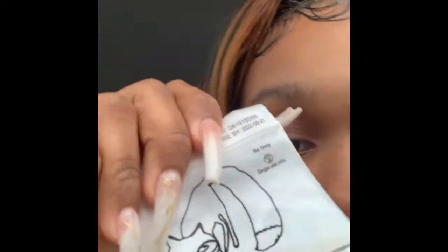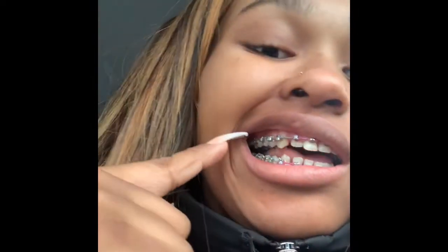I left the orthodontist. I got a power chain — a little small one just here to here, and then one here to here. They still want me to use these rubber bands at night, continuing from here to here, so they want me to keep doing that until next month. I don't see them until January 28th.